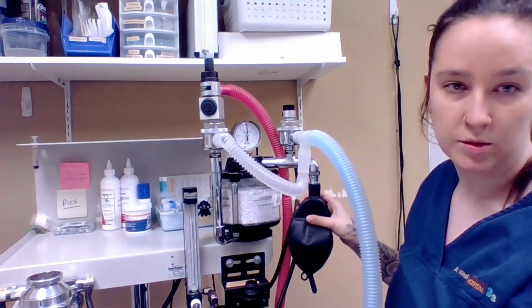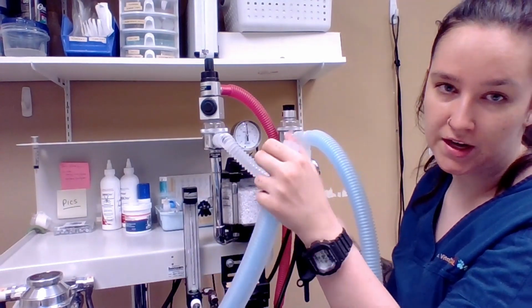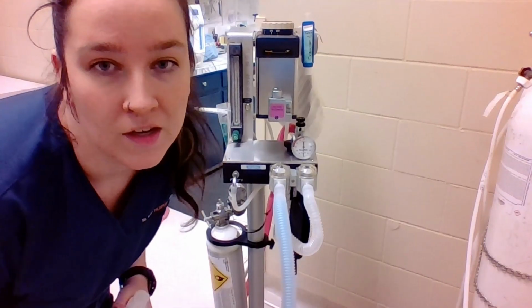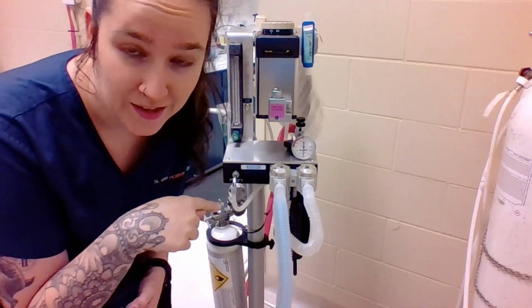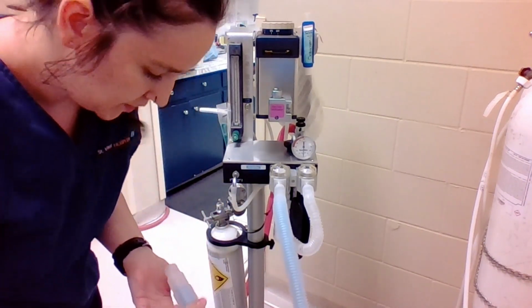And then the pressure will come out of our bag, we can let go of the end of the tube. And then I think I'm going to do it on our other rebreathing machine just so that you can see what it would look like if there were no leaks. Okay, so just for the purpose of the essential skill, I've moved to our other rebreathing system, and I'm going to check this one for you as well.